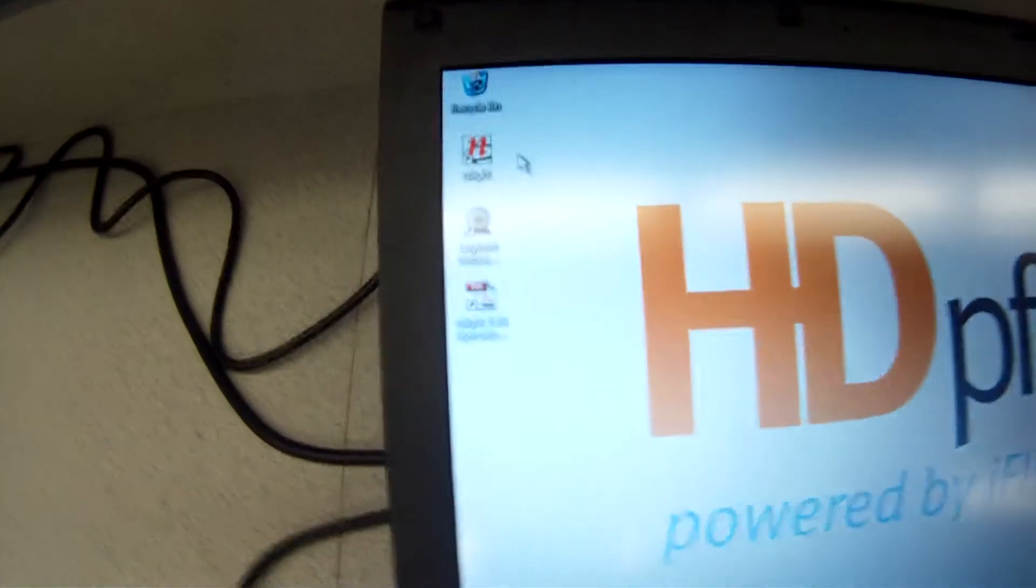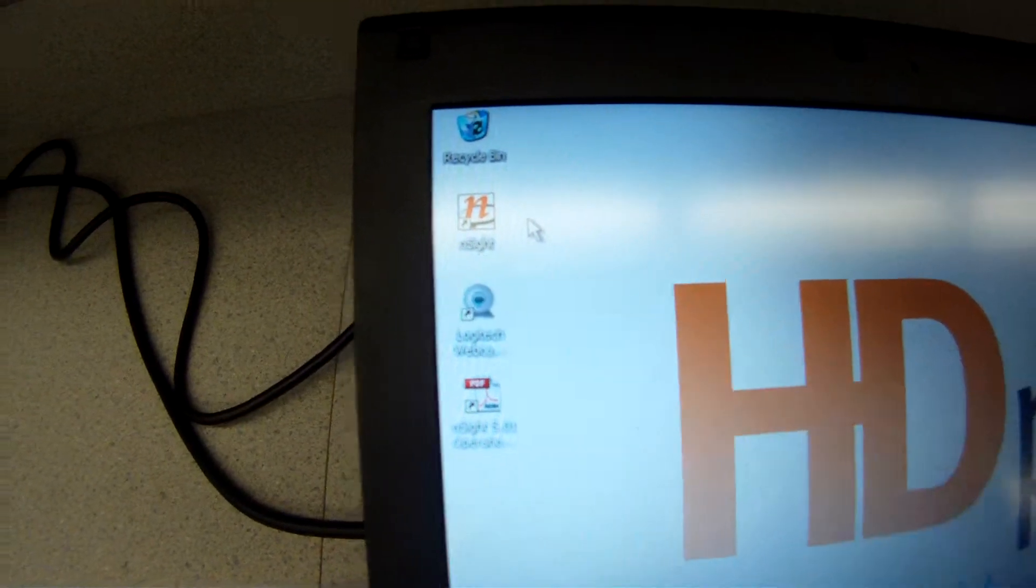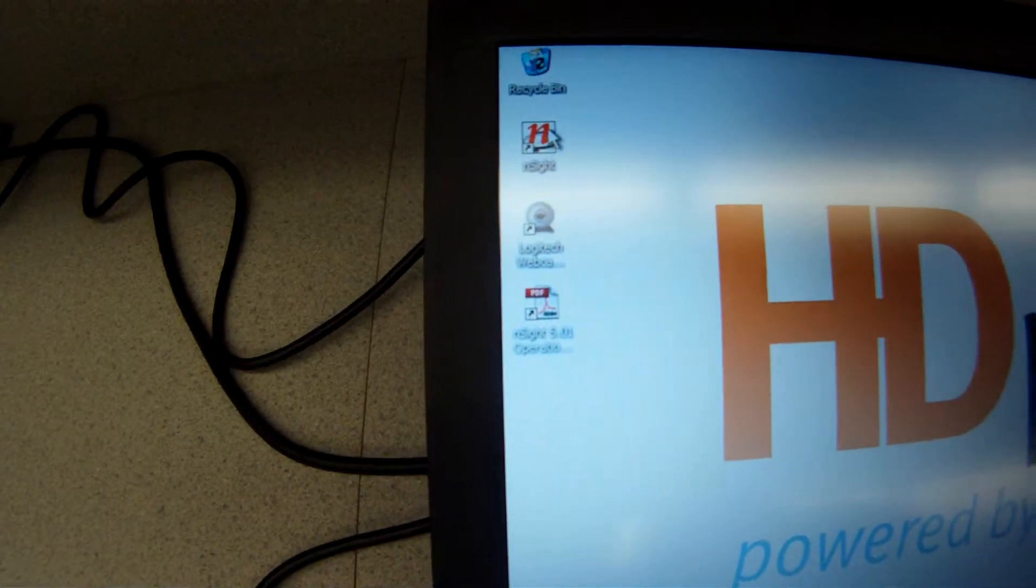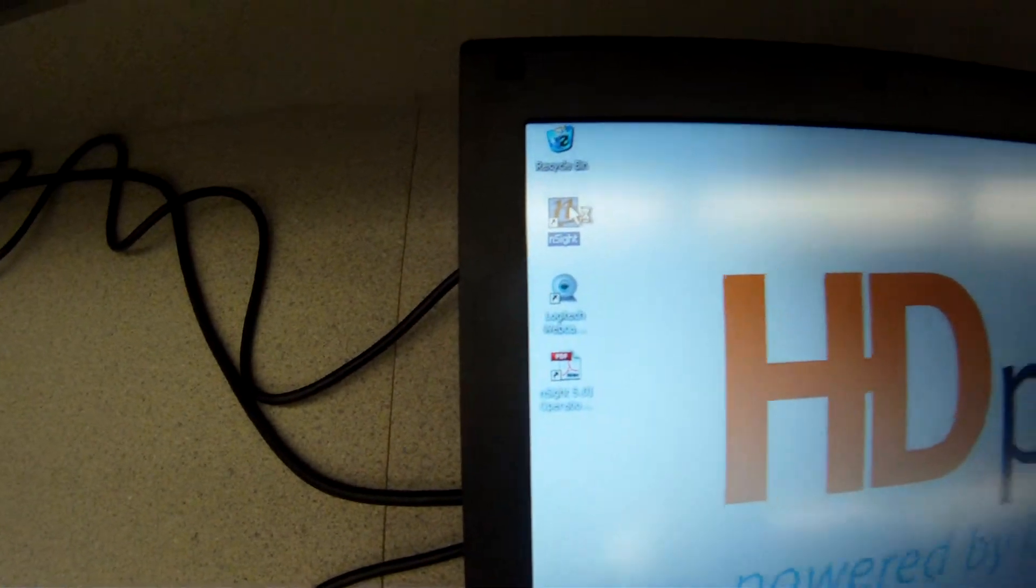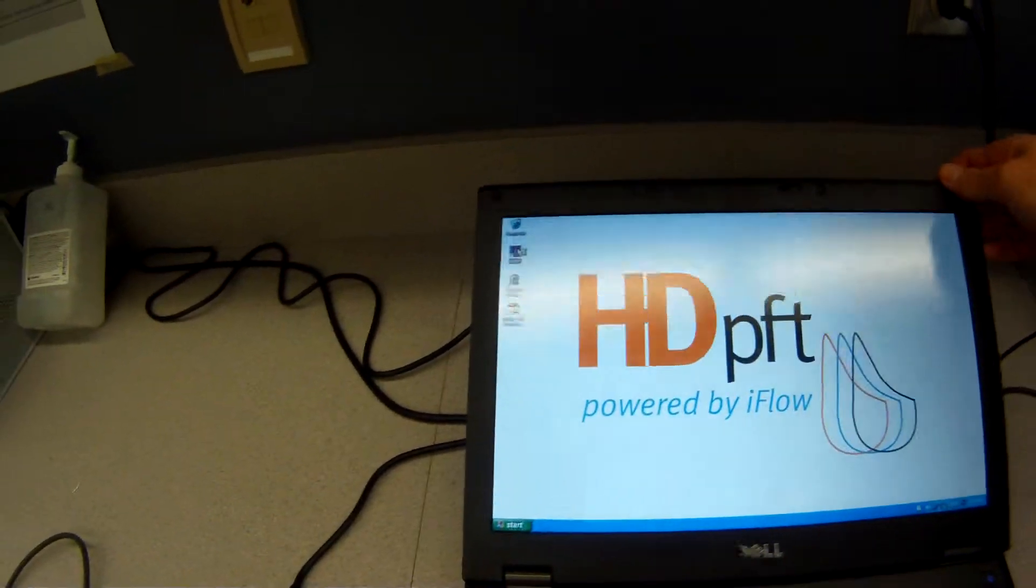I'm going to show you how to calibrate it and some of the basic features of the device. One of the first things you need to do is get the software going. We're going to click on that little Insight logo and that will start up the software for us.